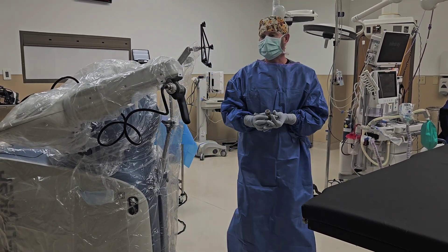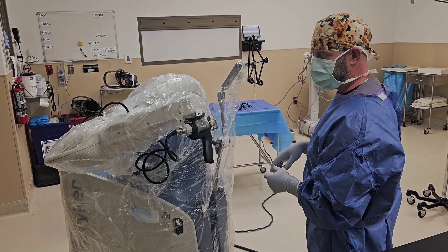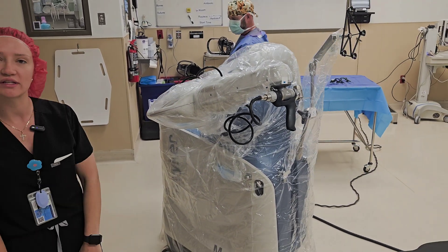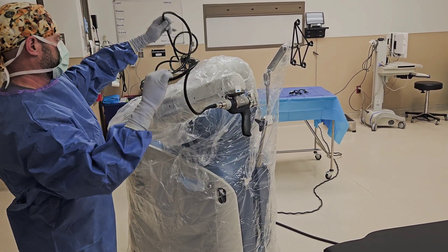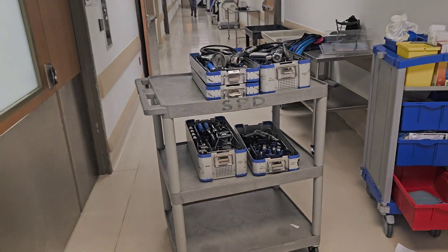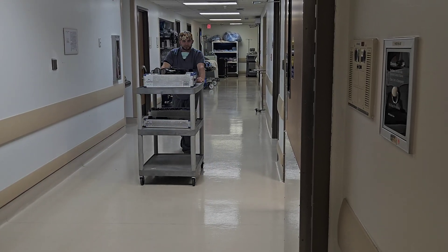After that's complete, put the blade the doctor prefers onto the hand piece and lock it in place. If the doctor prefers covering the robot with a drape or sterile gown, do that now so the patient coming in doesn't contaminate all the hard work you've done. Also, most doctors like the cord strapped down at one to two points of fixation so they're not struggling with it — Lance typically brings it around the Mako hand piece so it doesn't block any arrays intraoperatively, with just a little slack, strapped down at least one point. Special thanks to Lance, a surgical first assist, and Ashley, a Mako rep.